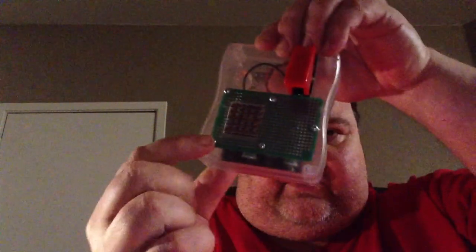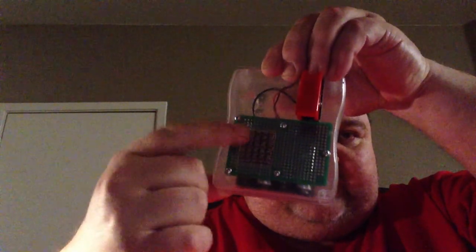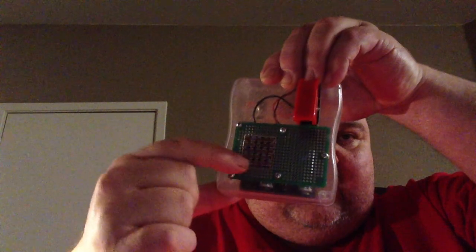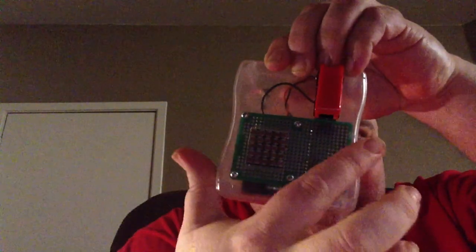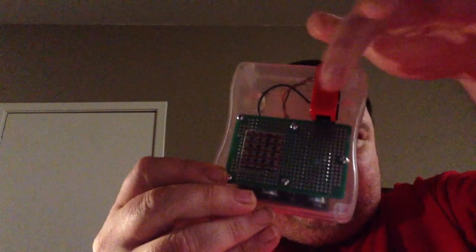There's the blind concept — a demonstration prototype of this idea. There's a little green circuit board here for mounting these parts. I've cut out a hole in the plastic enclosure, and there are little mounting nuts and bolts in five positions. You can see the wires in the case, and there are the batteries. Those of us with some electronics knowledge will realize we could make a current source or a voltage source, make the voltages adjustable so you could adjust for lighting conditions, and make it sense ambient light and auto-adjust so it works anywhere.